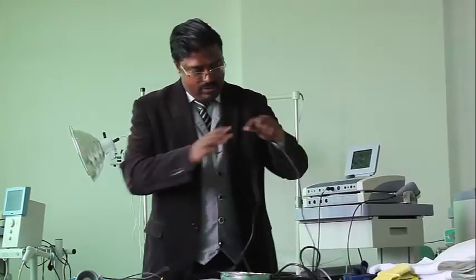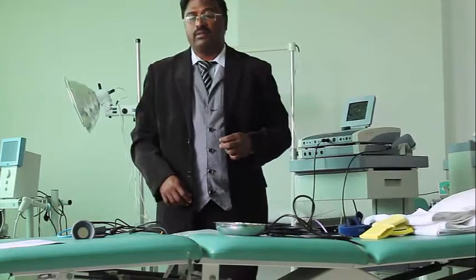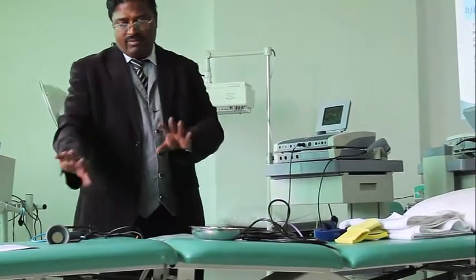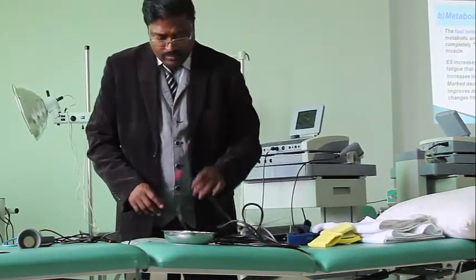Now, any doubts in these names, electrode names? Any doubts in electrode names? It's about wires. I will tell you about wires. First know the electrode types. After that, the wires.